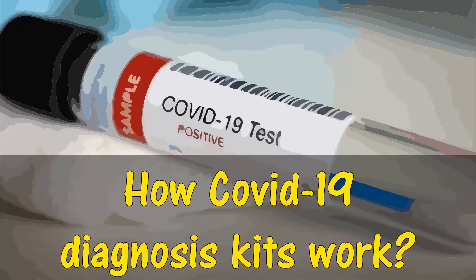In this video, we will discuss how a COVID-19 diagnosis test kit works.